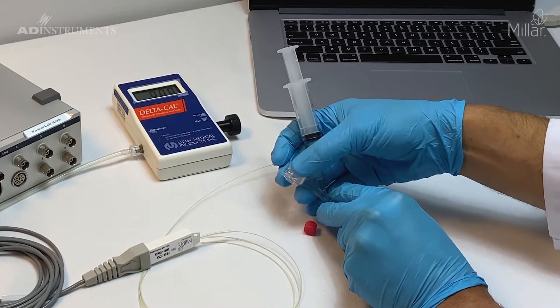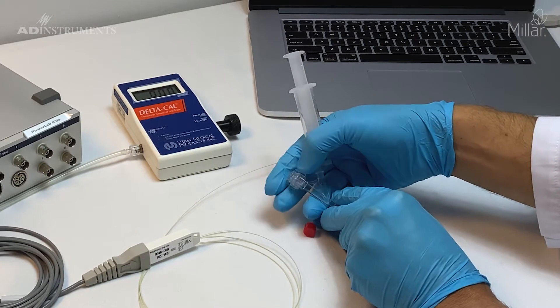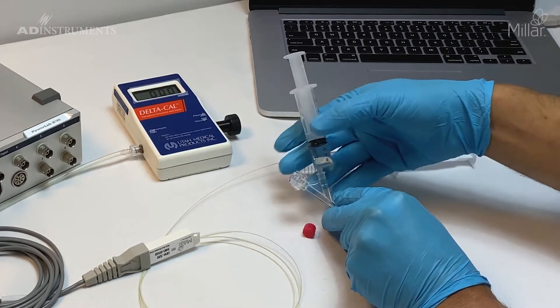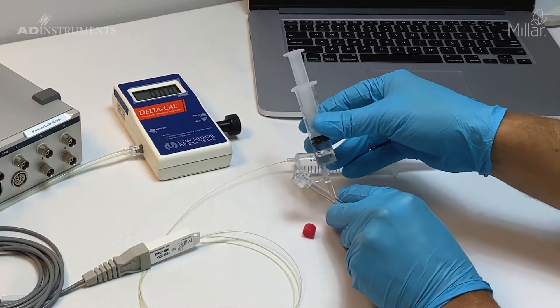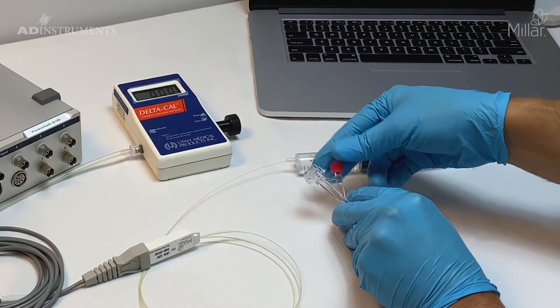I'll close off both sides, and while still holding the end, remove the syringe and replace the cap.